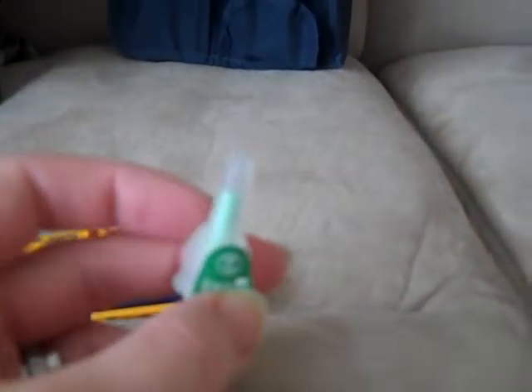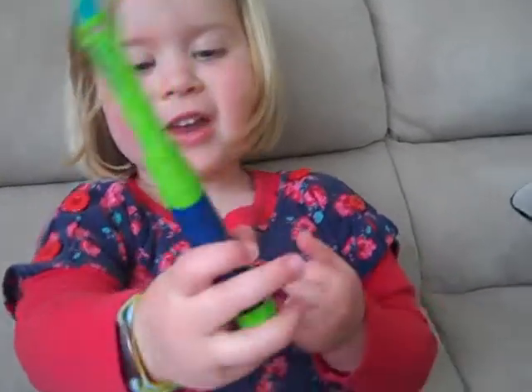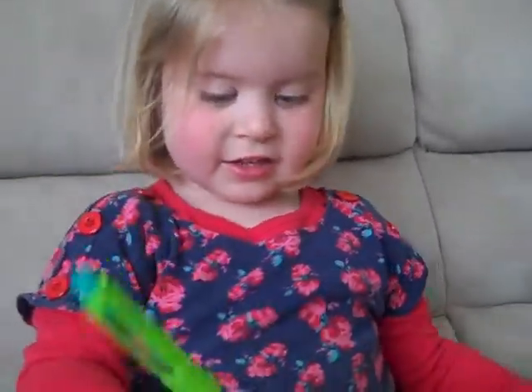They are teeny tiny little needles - four millimetre needles - and they screw onto the end of the pen. Where does your insulin go? My arm, and your tummy, and your leg, and your arm. In the morning on your bottom.